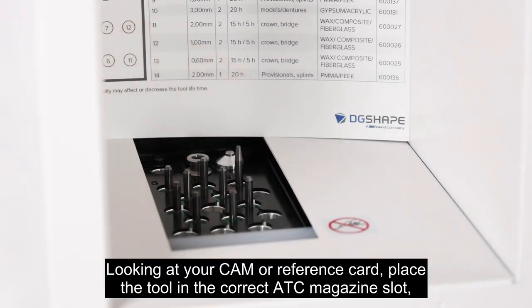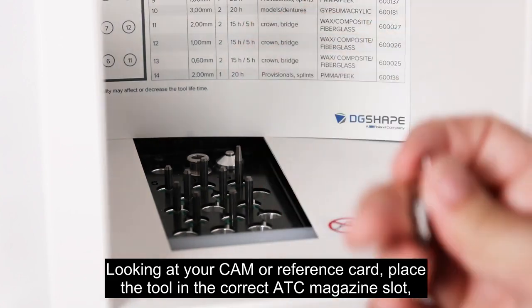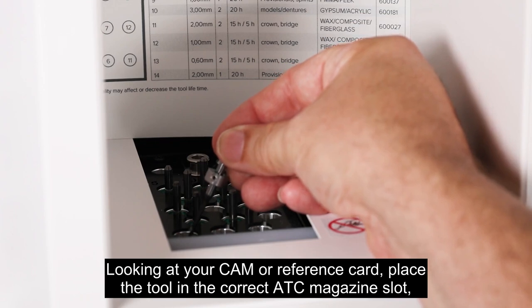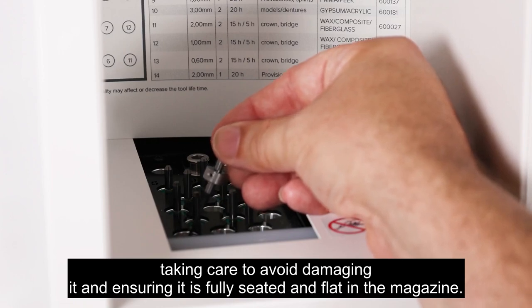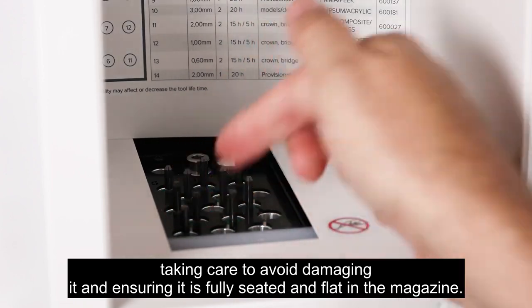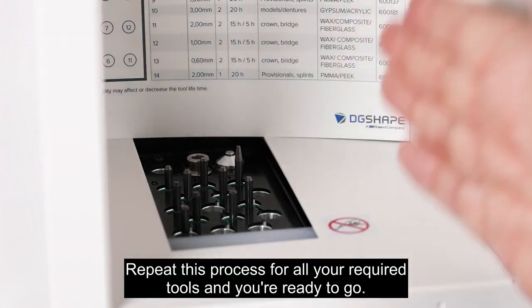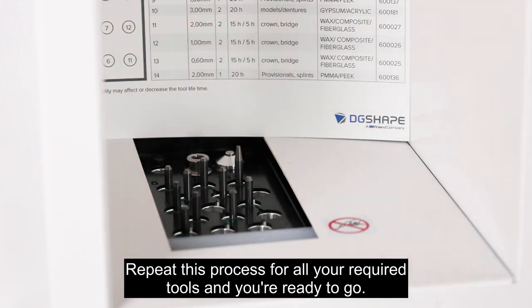Looking at your CAM or reference card, place the tool in the correct ATC magazine slot, taking care to avoid damaging it and ensuring it is fully seated and flat in the magazine. Repeat this process for all your required tools and you're ready to go.